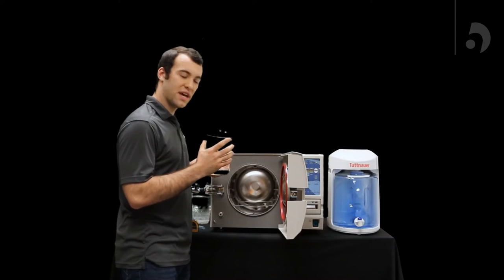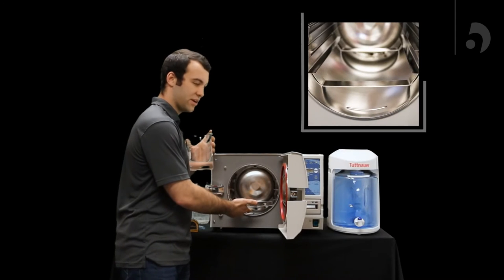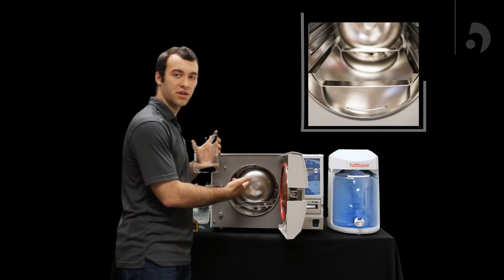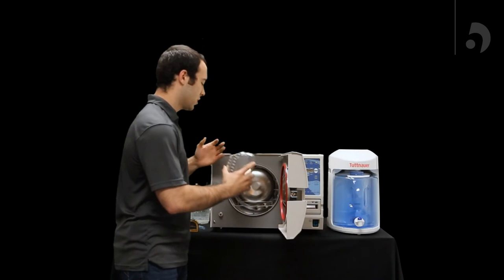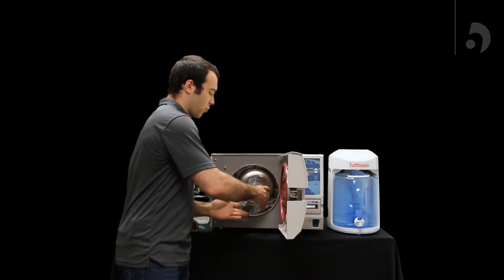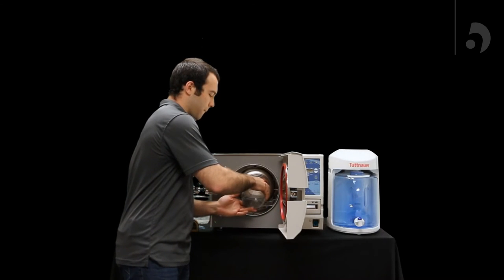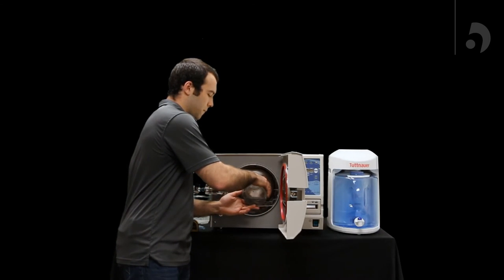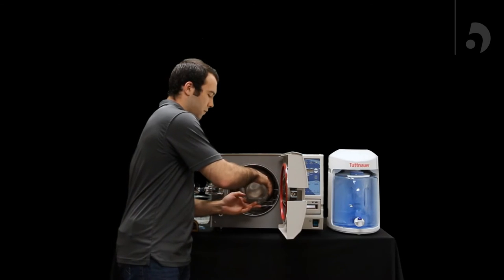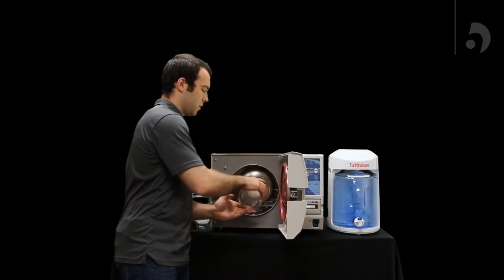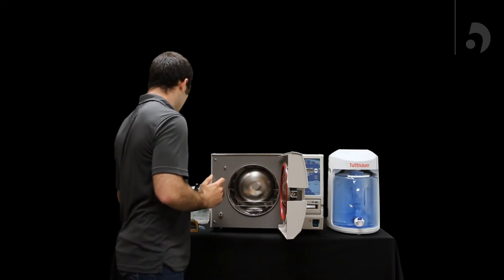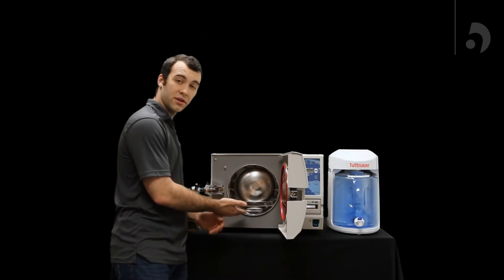So for this test, you're also going to see this line right here, and to determine if the pitch is satisfactory, we're going to just make sure the water comes up right before that. So going to slowly pour it out. And you'll see in our case, it is behind the line. So we're good to go.